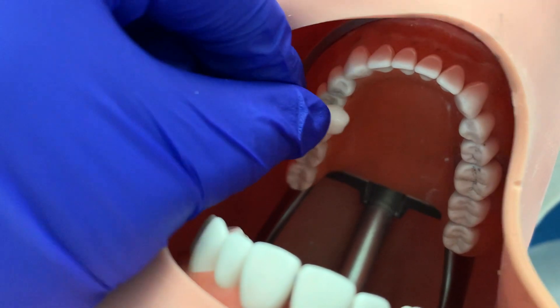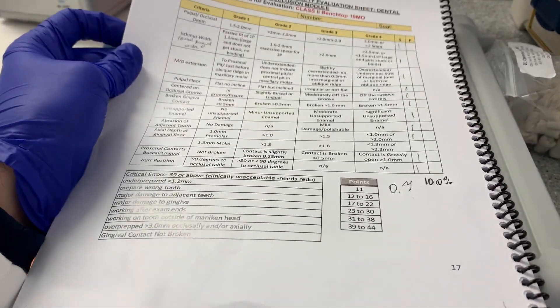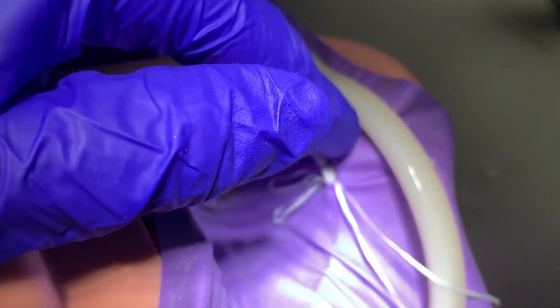Today in GRD we're drilling number 19 and number 20 MO. I already got my signatures for both of these, so I pretty much have an hour just to practice. After that I think we're placing rubber dams, which will be pretty exciting. It is freezing — cold for a Florida boy. Got a triple layer next time.